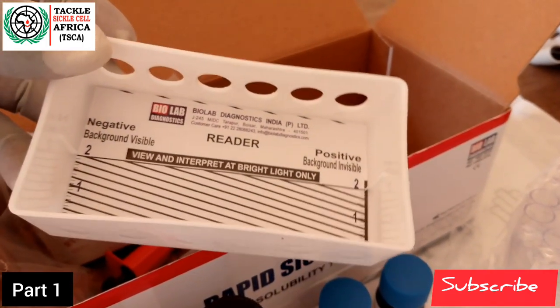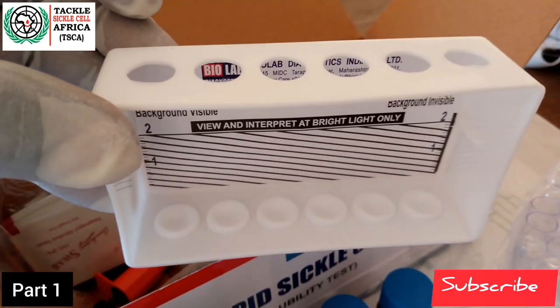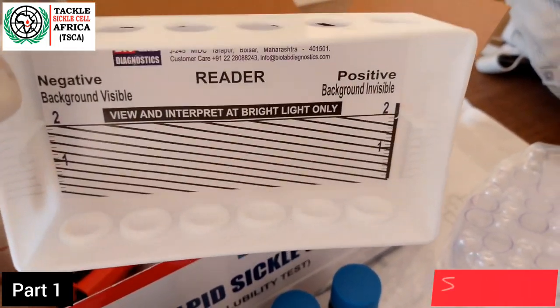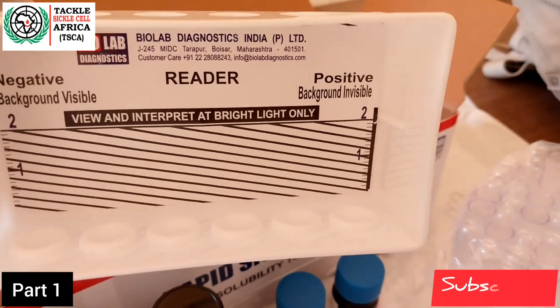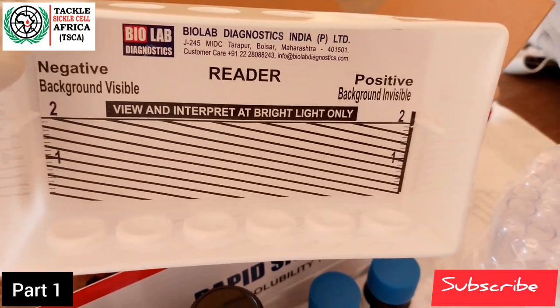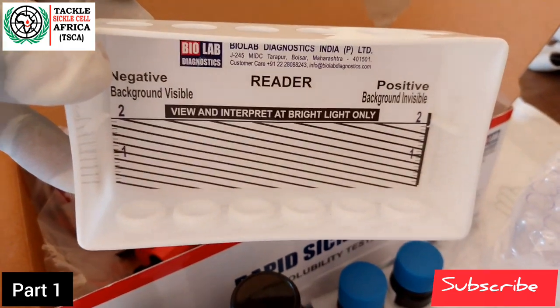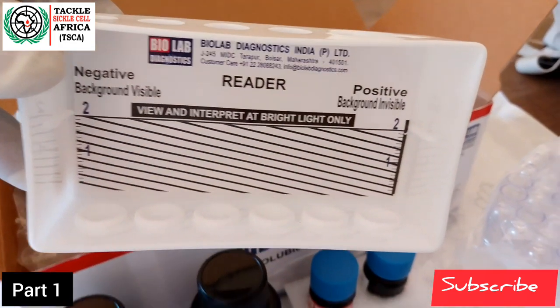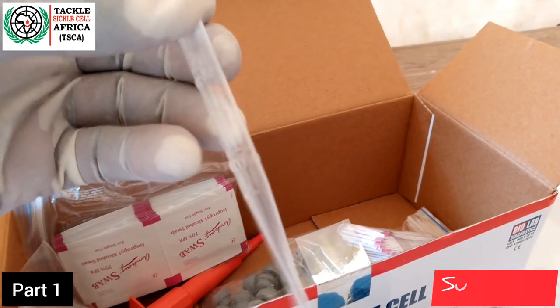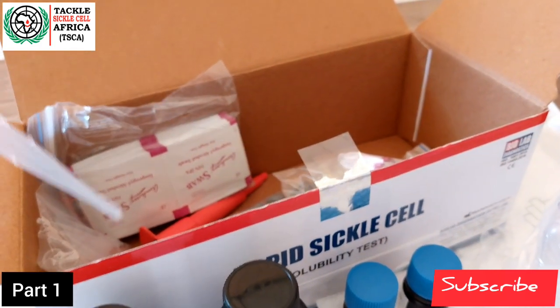We also have the test tube holder. After putting the reagents and the drop of blood from the client, you place the test tube into this holder so that it does not get lost or break. Within the test tube holder we also have the reader, which I shall demonstrate in part two — how it is used to interpret the results of this sickle cell test.